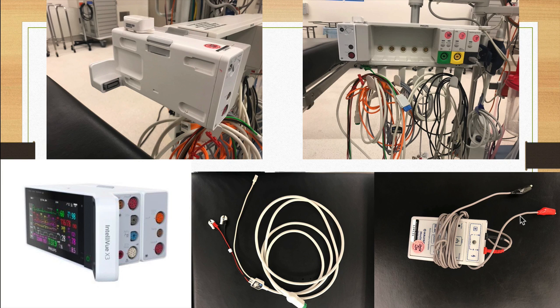Super helpful. Unlike the old school ones, which rely mostly on clinician observation or feel, which have again not been shown to be as accurate as the accelerometry. Nonetheless, they're there for backup because on occasion these things can get finicky.